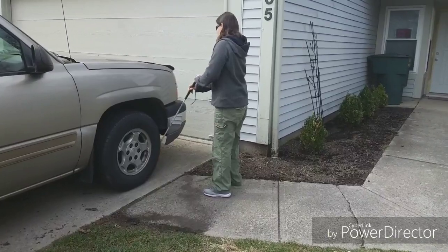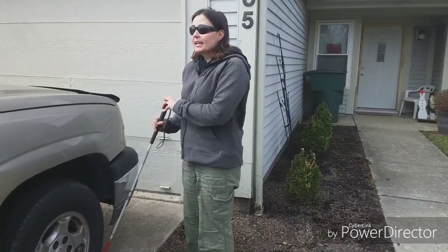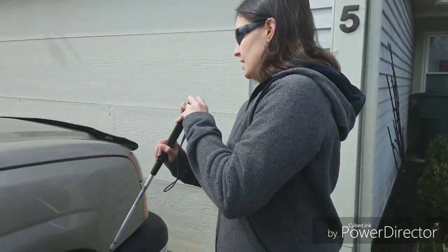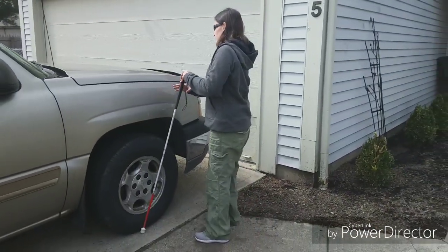Now, why did you do that — grab it and push it on the ground? Because of my balance problems I have trouble walking up little steps. So what I do is I put my cane where the step is, walk up to it, walk onto it, then I'll start using the cane with the rolling tip again.